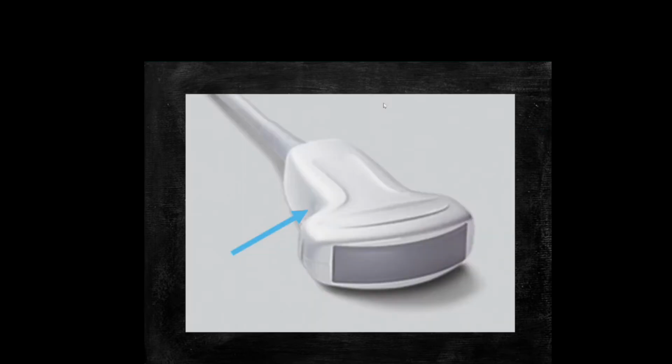And so here's the arrow, just showing us on this transducer where that probe marker is, and that should also be on the left side of the screen when we're doing anything like abdominal imaging. Cardiac is the only thing that's different. That's going to be on the right side of the screen. So cardiac on the right side of the screen, everything else on the left side, and then make sure it lines up with your transducer, and each system is going to have a different marker, so just be familiar with whatever system you're using.